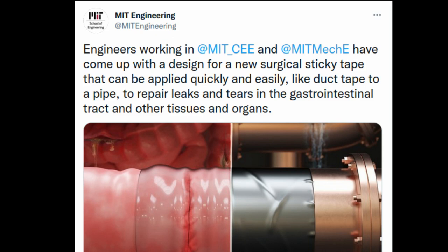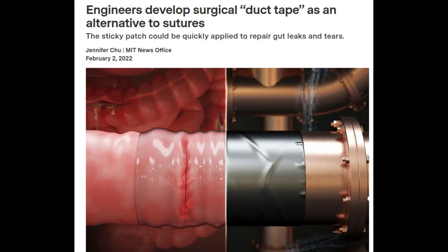Like duct tape, the new patch is sticky on one side and smooth on the other. In its current formulation, the adhesive is targeted to seal defects in the gastrointestinal tract, which the engineers describe as the body's own biological ductwork.